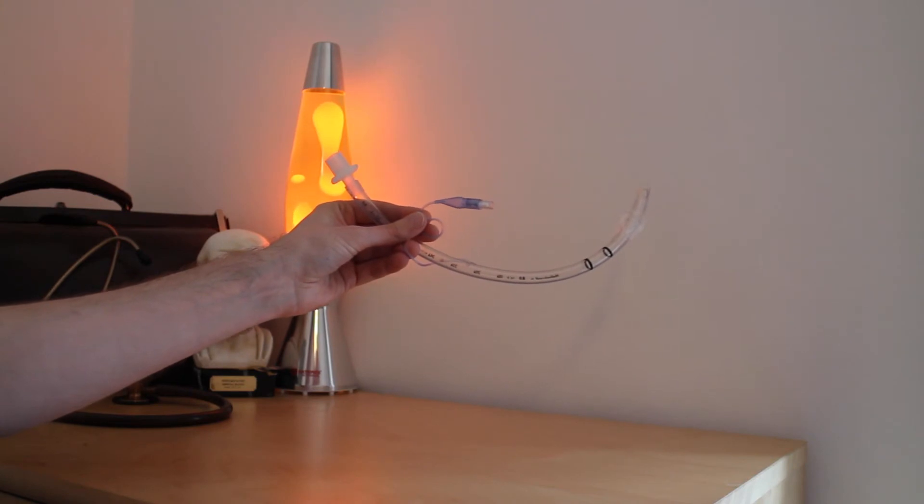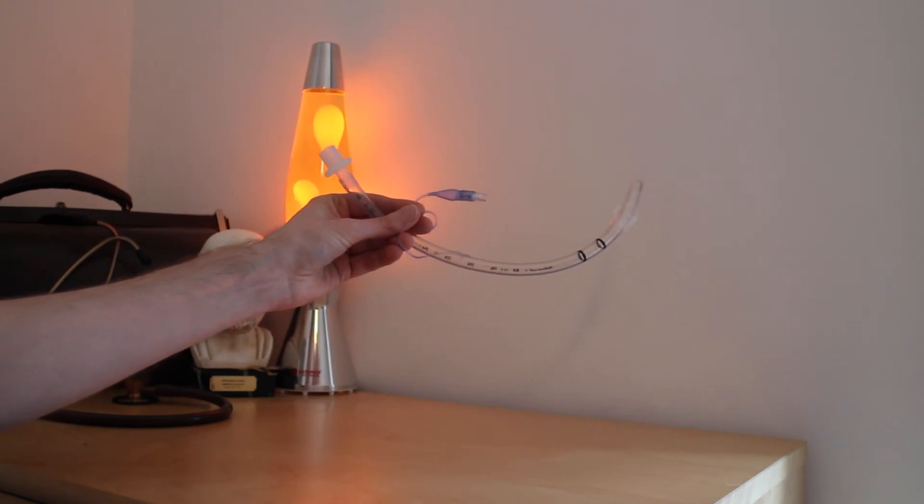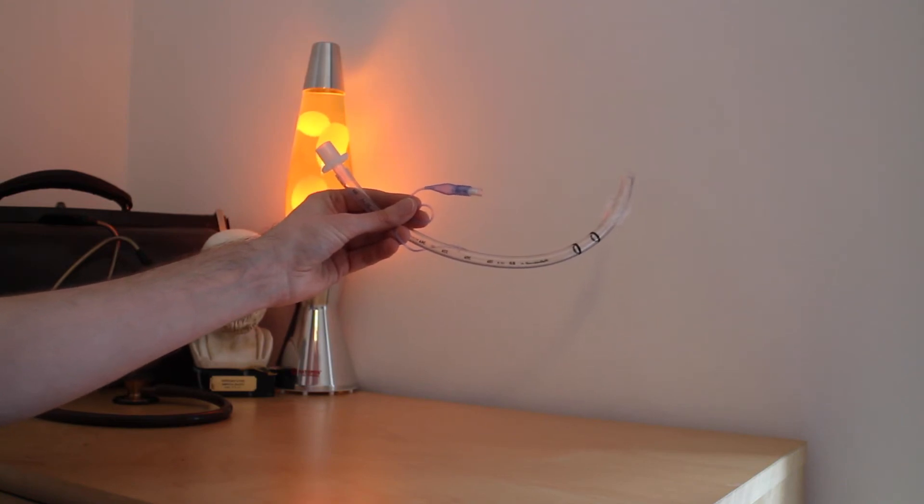Contraindications to the use of this tube include patients who need a surgical procedure that may require neck dissection, in which case you might have to do a tracheostomy and ventilate the patient by a tracheostomy tube.